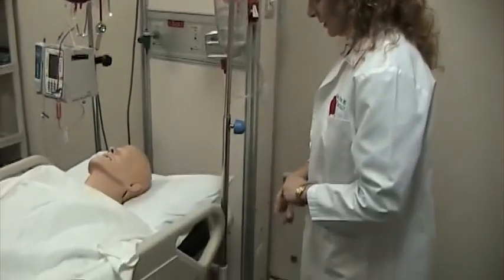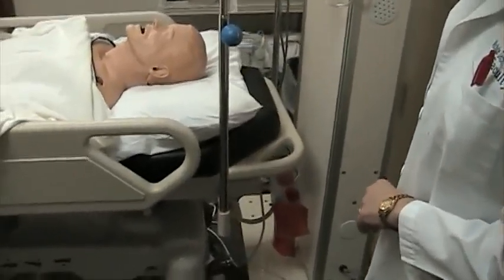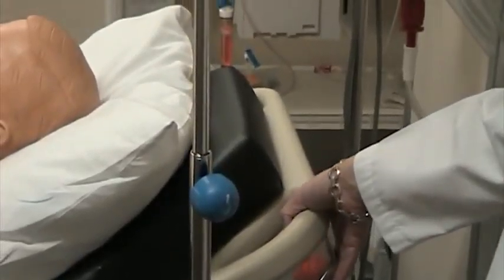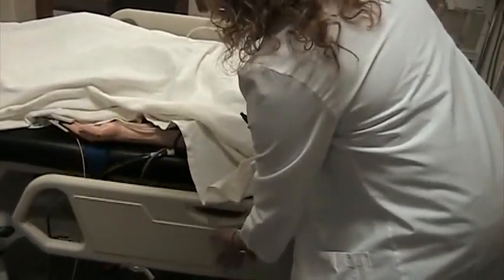The other thing that you need to be aware of is how the bed operates. It's not your standard hospital bed. So you need to come to the head of the bed, grab the silver bar, and lift at the same time. And that will help you raise your bed up for your patient. And you also need to do the same to put it back down. But these are operational just like normal. Go ahead and get the side rails down.